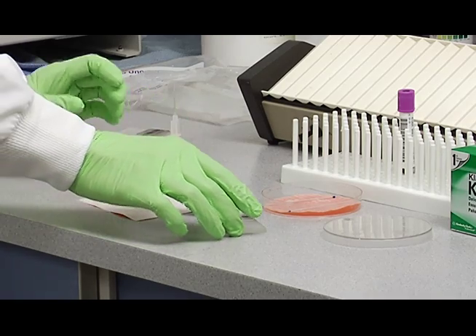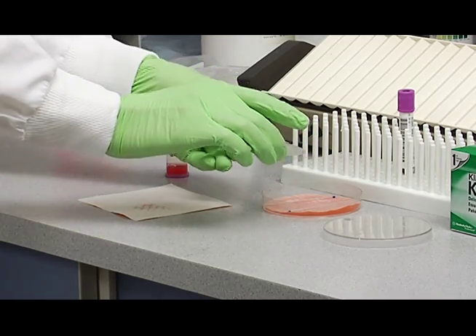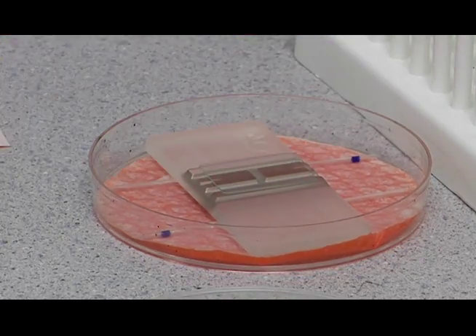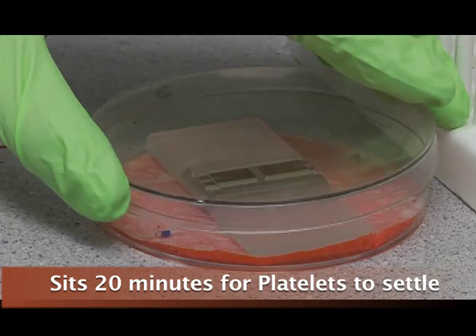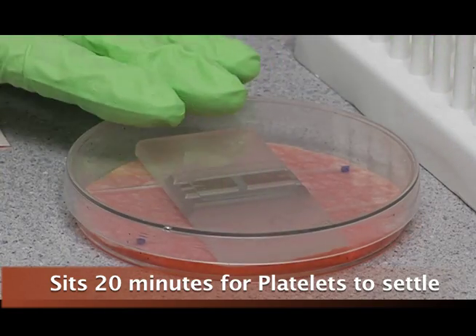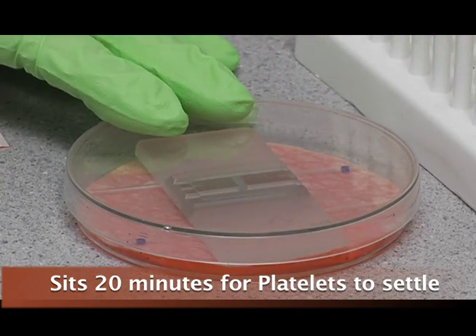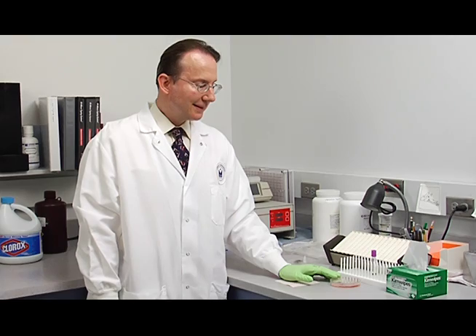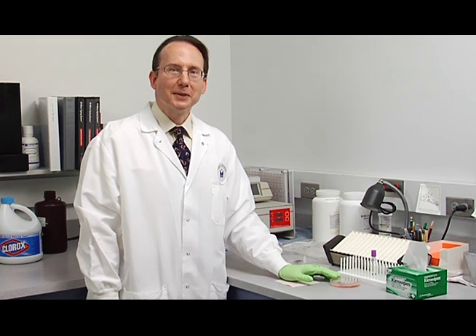Now place your hemocytometer in the moisture chamber and cover it. It sits there 20 minutes for the platelets to settle. This concludes the loading of the hemocytometer.